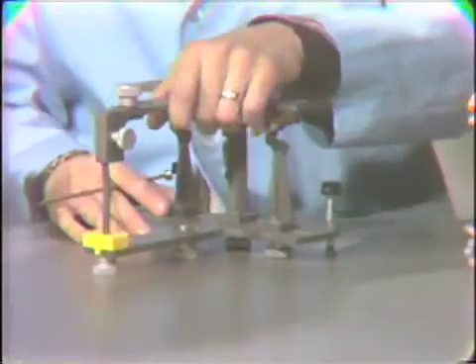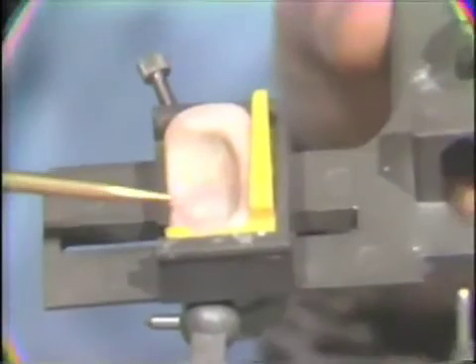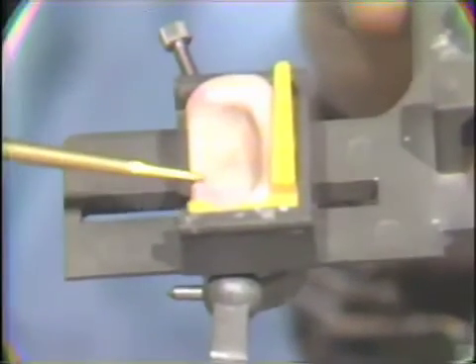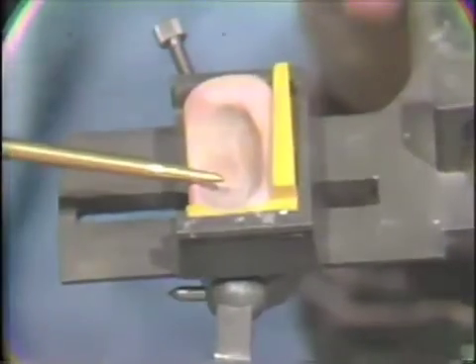With this articulator, instead of using mechanical equivalents to program in the condylar guides, molded acrylic is used in its place, and this is programmed in to give the desired mandibular movements to the articulator.